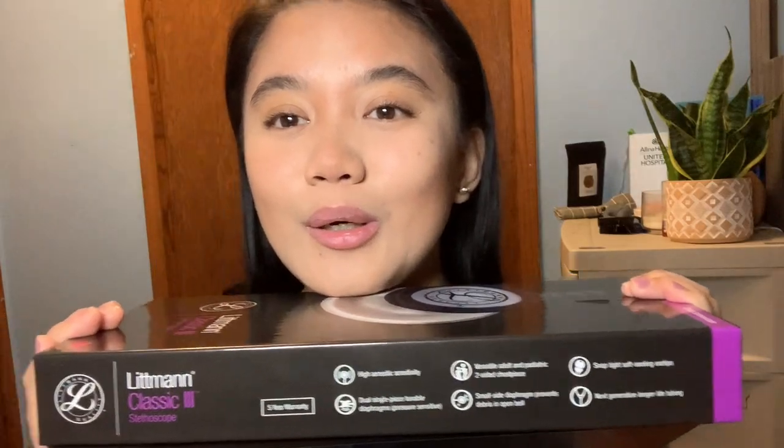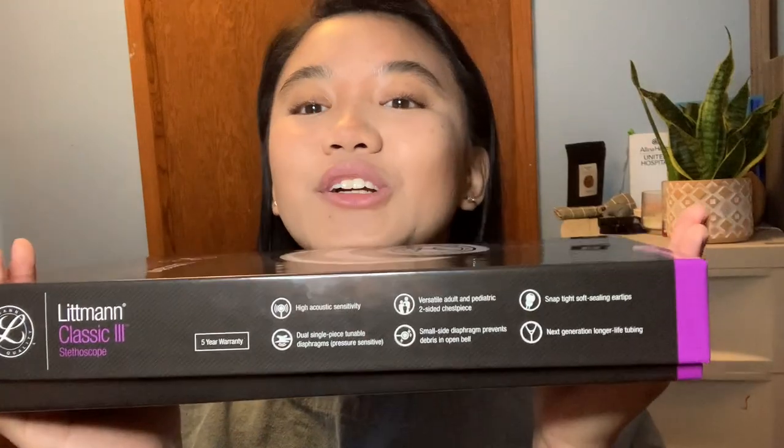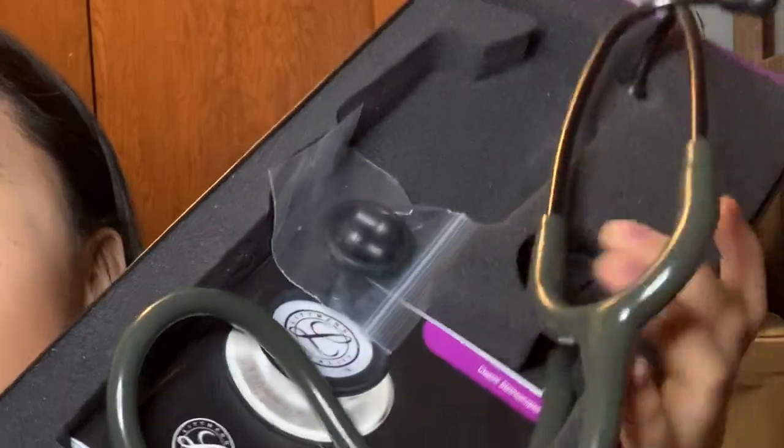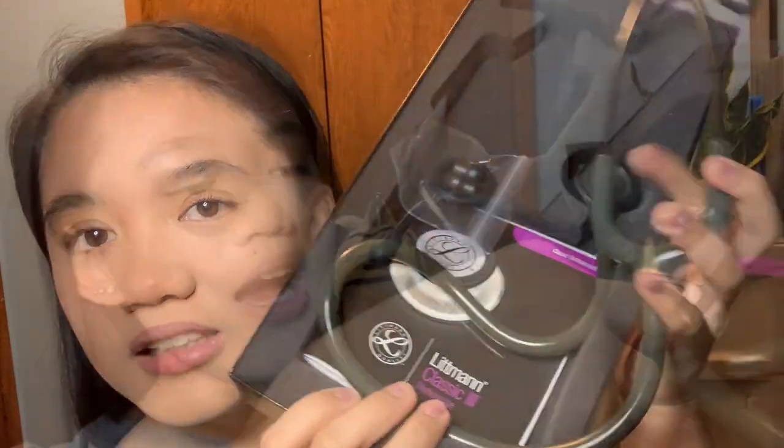Let's open her up. This is what she looks like — very rectangle-y. Let's go, crank her up! This is what she looks like in her little home. She's excited to see me! I got the color olive green because I'm really fond of the army look that it has. In the future I do plan to get enlisted in the army, but we will see if that changes.